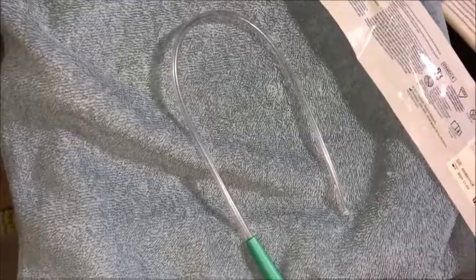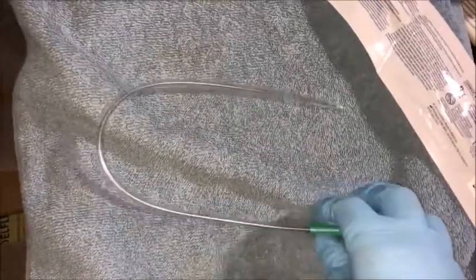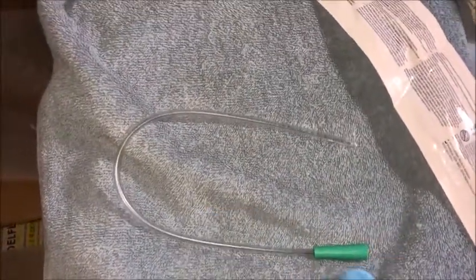I know this is super simple for people who have experience working with catheters, but I had somebody ask so I wanted to share. With that being said, I'm going to flip this around and show you guys the difference.